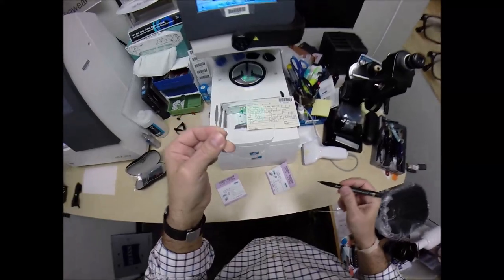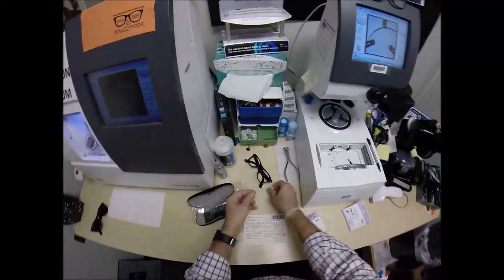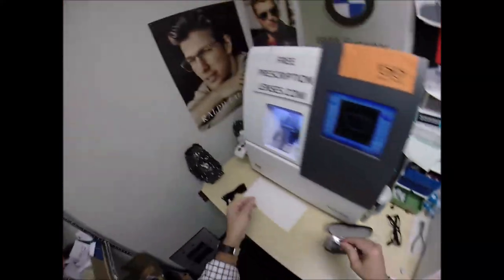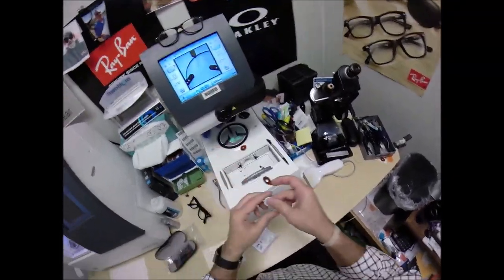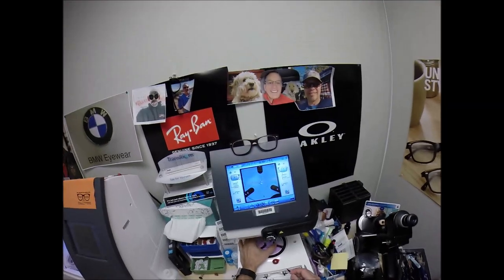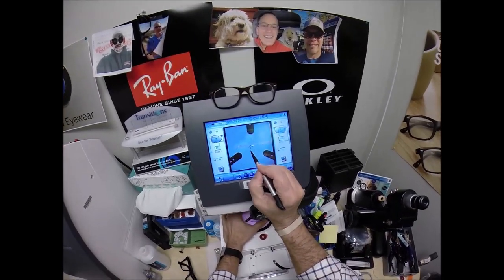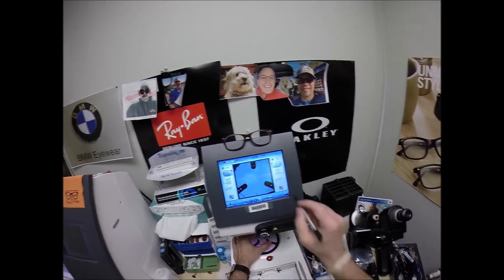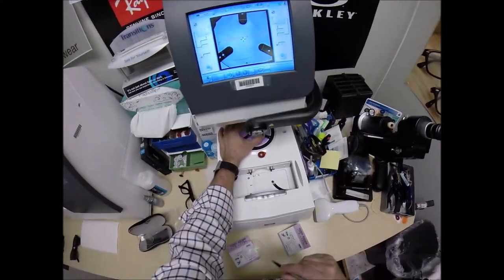This is the left lens — if you're just coming in halfway through, let me recap. This is the block — I like to call it Jenny from the Block. I need to attach two double-sided adhesive stickers to the lenses so they'll stick. Pull the paper away to make the black side sticky, line up the magnet. The three dots I put on there tell me it's oriented correctly. The blue cross is the geometric center of your frame; your eyes are just above that and inset, so we're going to get everything lined up perfectly. Make sure the lens is large enough to fit — I always like to double-check that. The arm comes down and places the block onto the right lens.